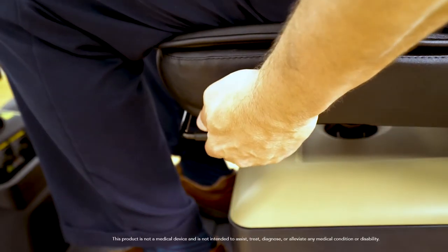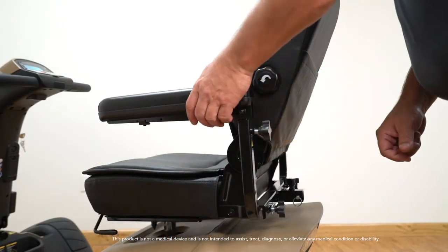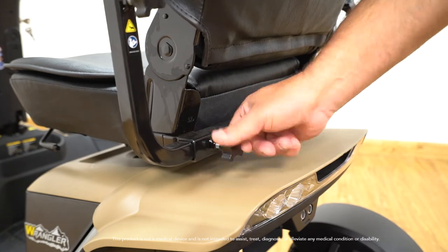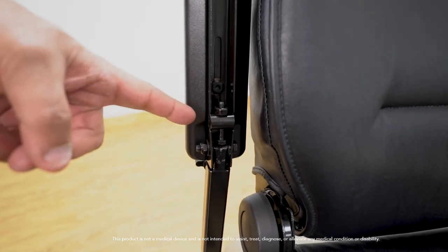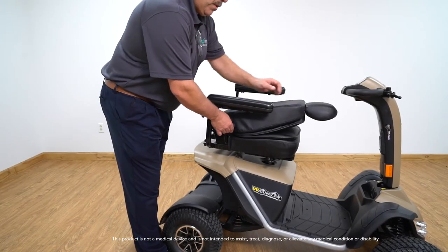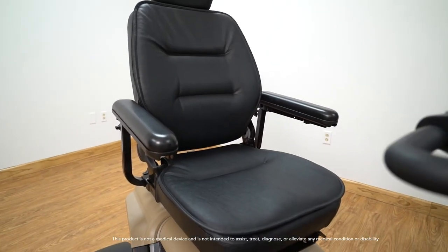The Wrangler seat is designed with a slider that will allow you to move the seat forward and backwards for your comfort — simply use the lever underneath the seat. You can also adjust the height of the armrest by turning the knob to raise or lower them. The armrests are also width adjustable by pulling out the pin and turning the adjustment knob. To adjust the angle of the armrest, simply loosen the nut and turn the bolt to the desired setting and then tighten the nut back into the lock position. To adjust the lumbar support, simply turn the knob on the seat to extend the lumbar. The seat is designed to fold flat and also comes equipped with a recline. For easy transfers, you can swivel the seat to either side. The seat comes with a pillow top on the seat and seat back for added comfort.